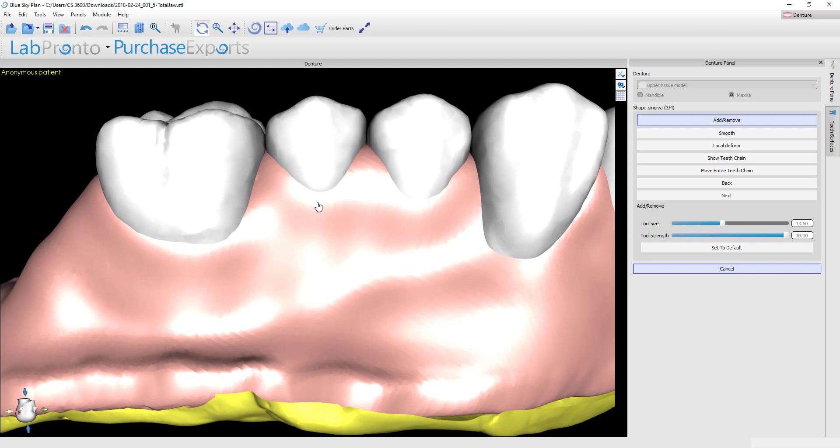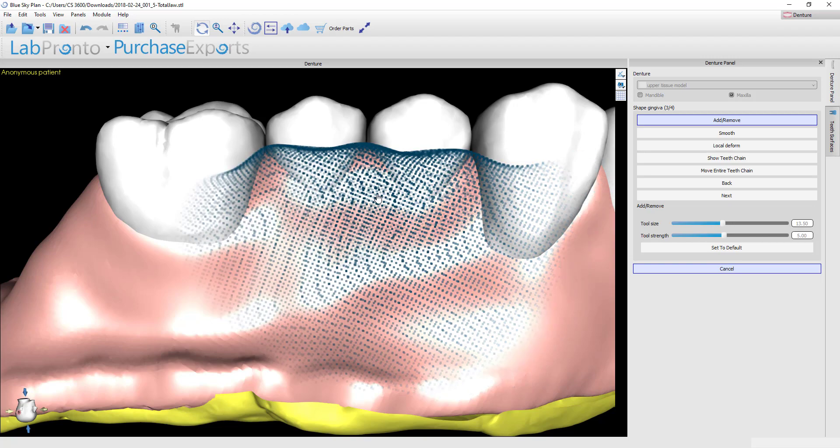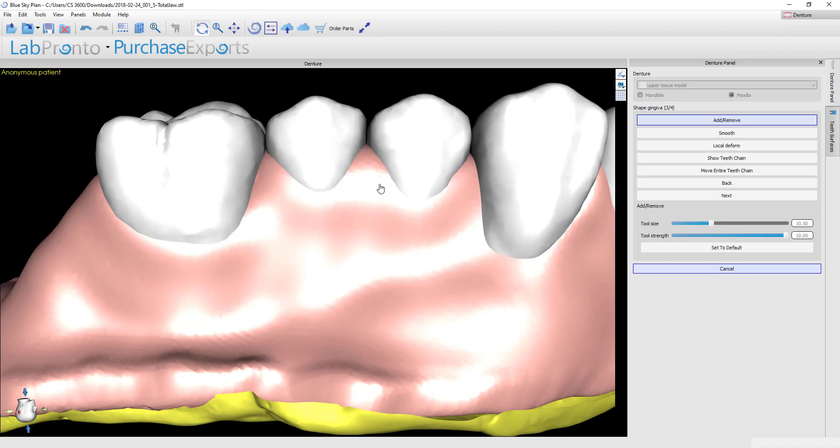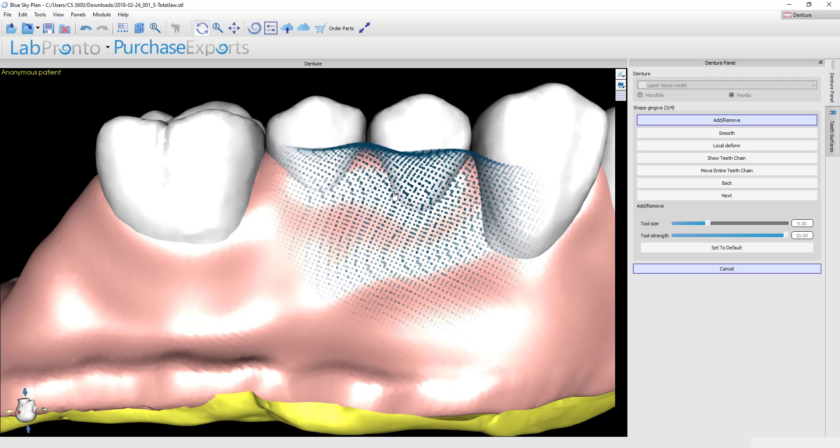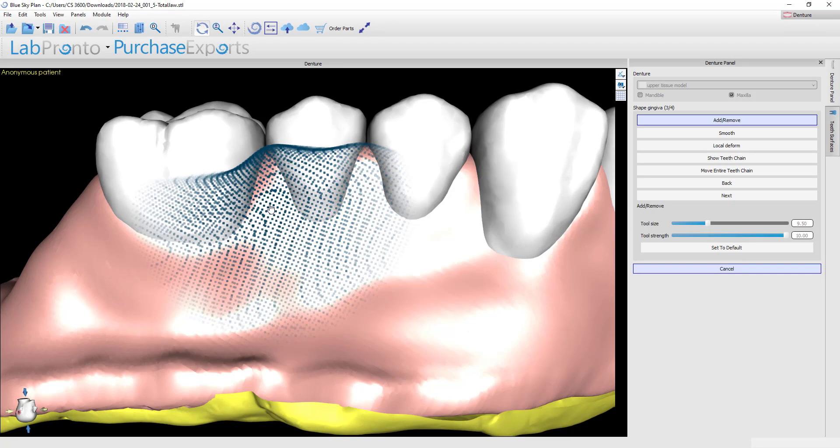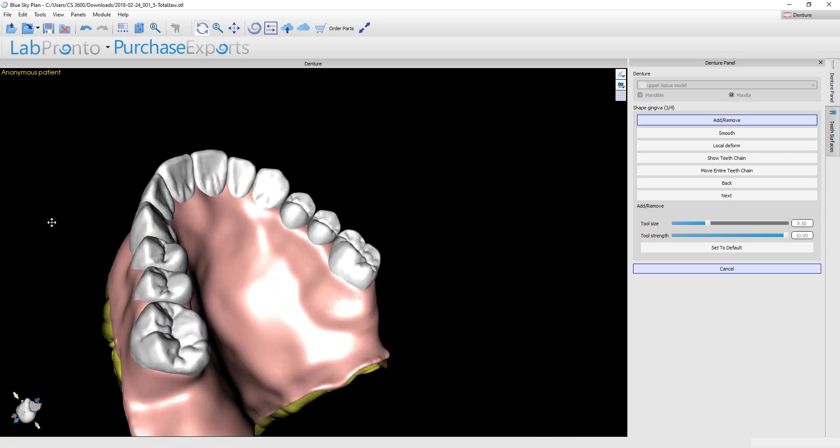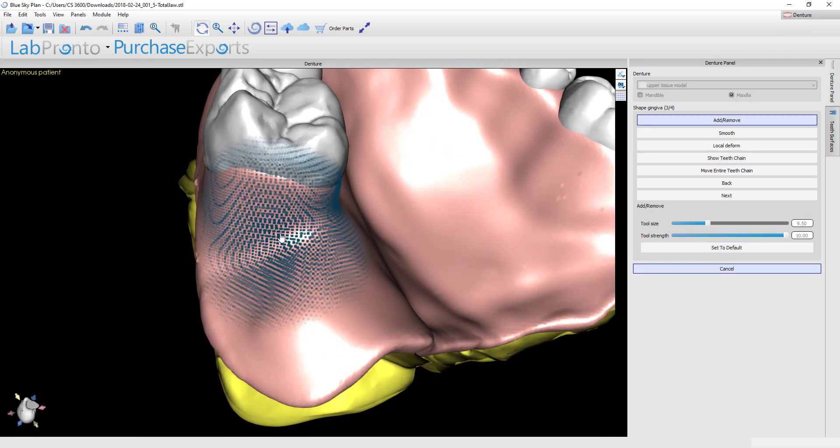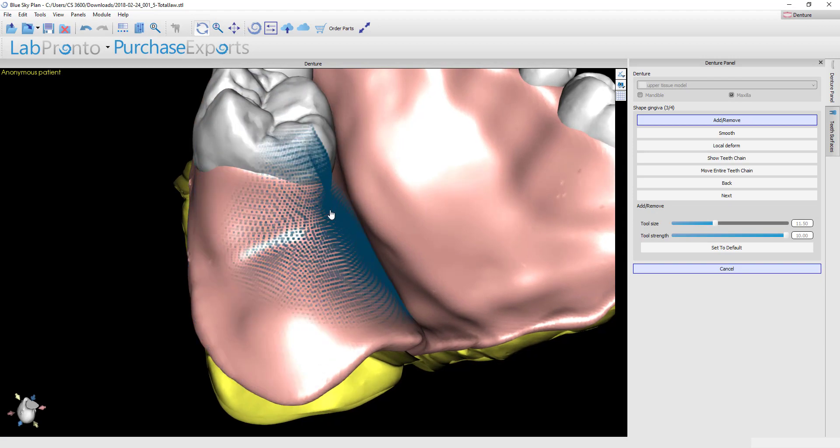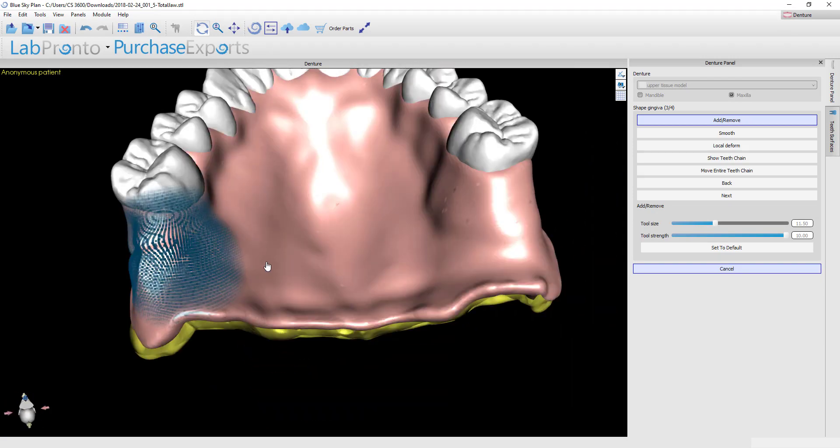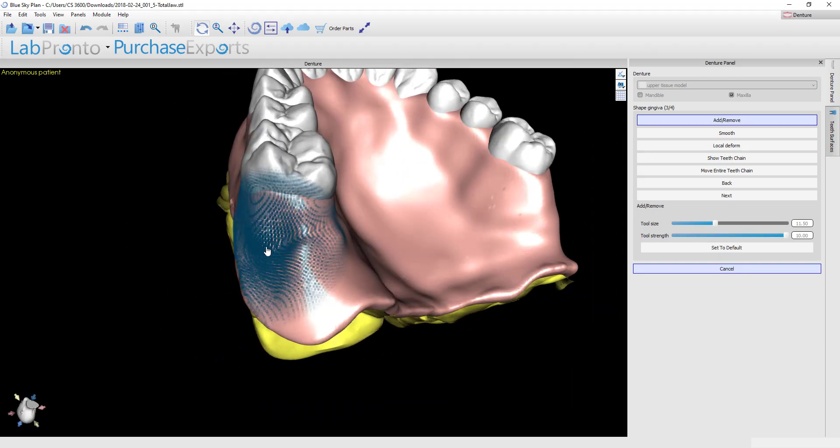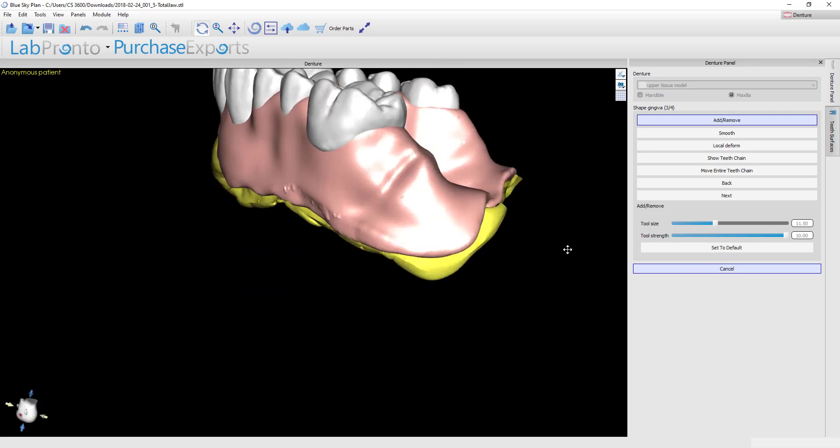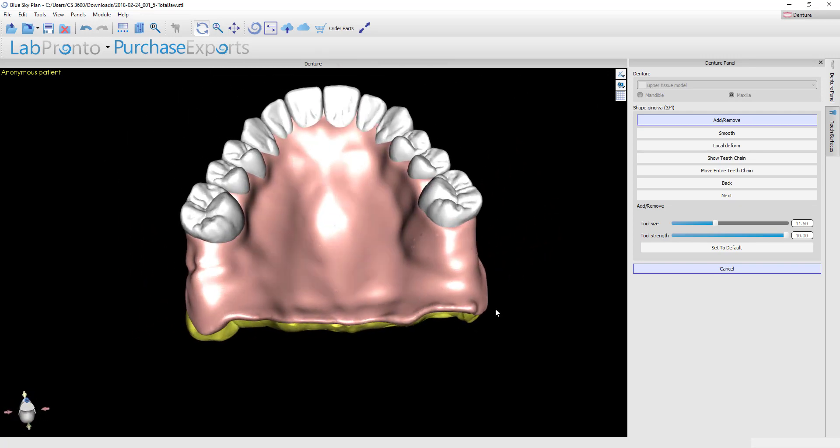Now if you want to use that as a remove tool, then you'll do the exact same thing, only you'll hold down the control button instead of shift. So here there's a bit too much gingiva on these premolars. I'll hold down the control button, minimize the spot size just a bit, and then left click, and you can see that that quickly takes away more material. Let's go ahead and add some more gingiva back here just to keep things even. I've created a bit of a wrinkle here in the mesh and I'll show you how to take care of that with the smoothing tool.